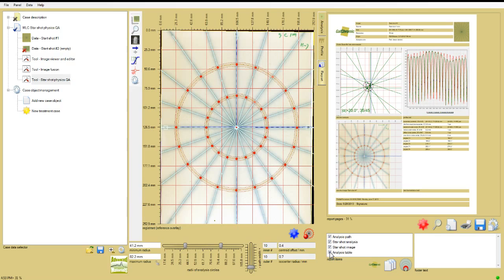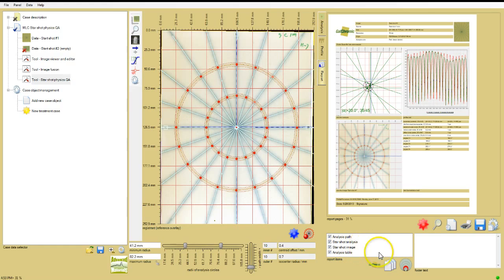Then click the output icon and select how to format the report. In this case, I'll choose all four charts on the same page.